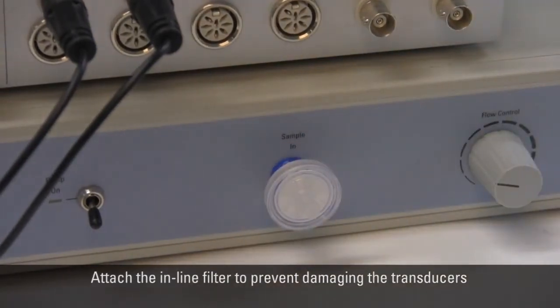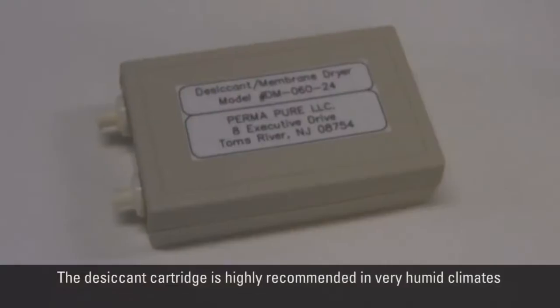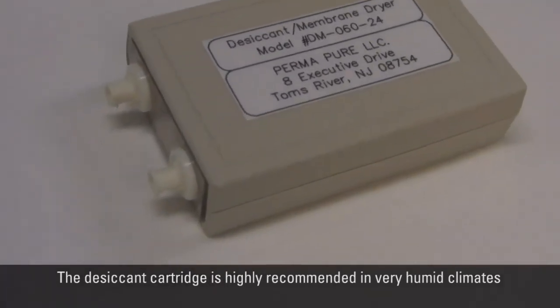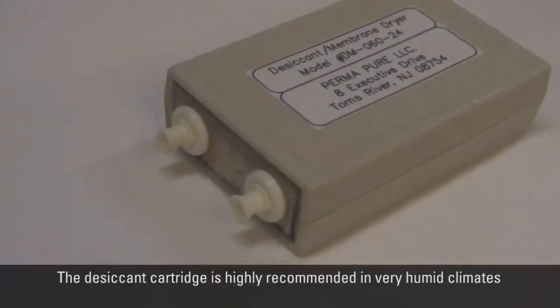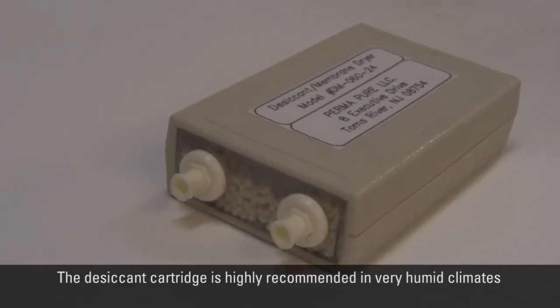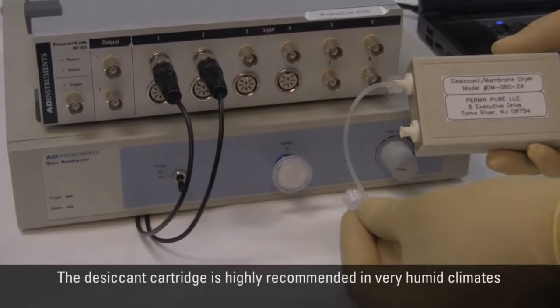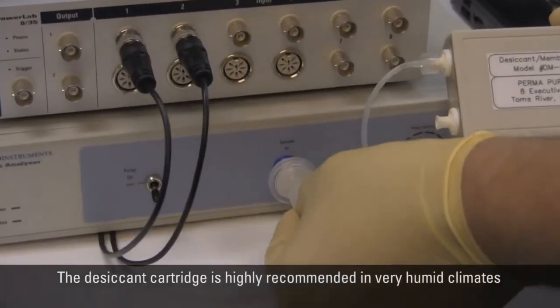Note that these filters are not antibacterial and need to be changed periodically. Use of the desiccant cartridge is highly recommended, especially in very humid climates as it helps to dry expired gases prior to analysis. Use the silicon tube to connect the desiccant cartridge to the filter at the sampling port.